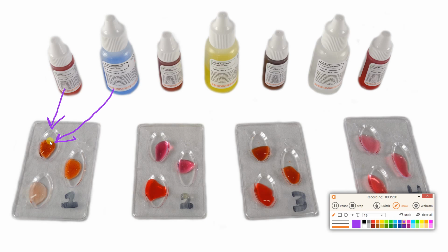If I see agglutination, it means the anti-A's had something to grab onto, which means the blood must have had the A antigen. Depending on the combination of agglutination that I see, I can determine the blood type.